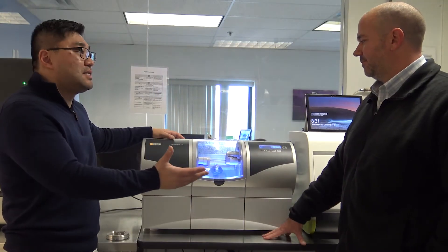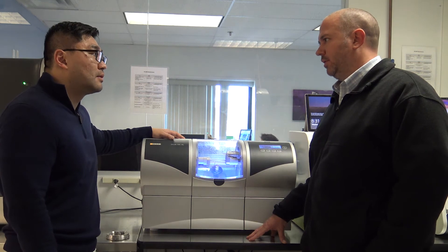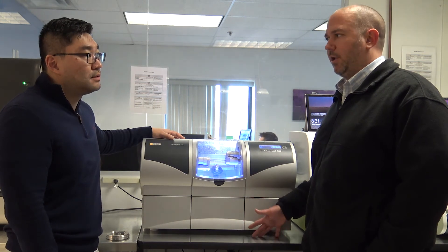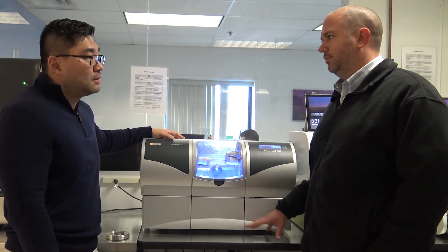Now, did you mention that the MCXL comes with the CAM software? Yes, the MCXL and MCX5 do come with the CAM software. So it's a very seamless transition if you're using the in-lab software — you just export the CAM, it's ready to go, hit mill. But also, let's say you have 3Shape for instance and design a crown and you want to mill on the MCXL real fast — just export it as an STL, import that STL into CAM, and then just go ahead and mill.